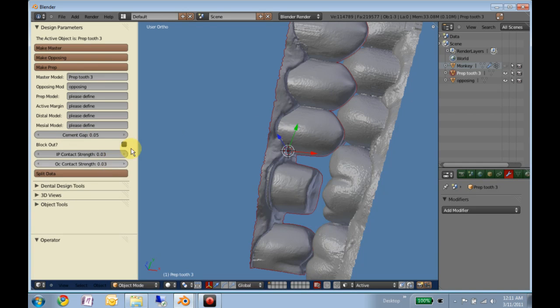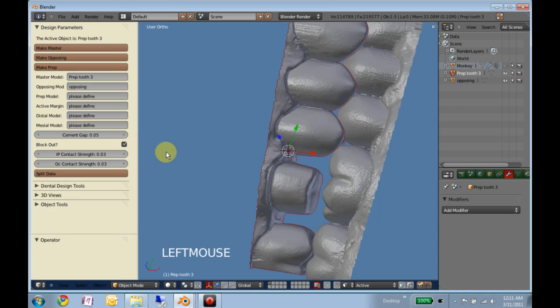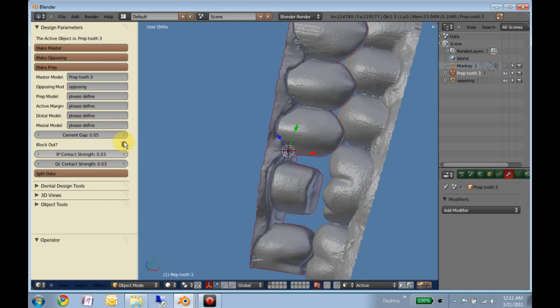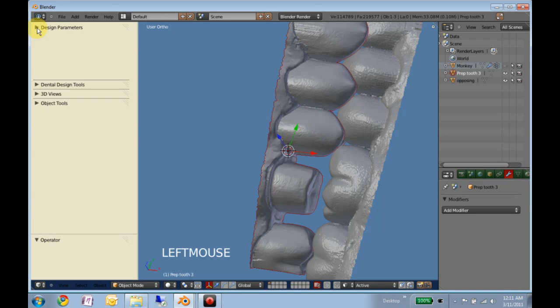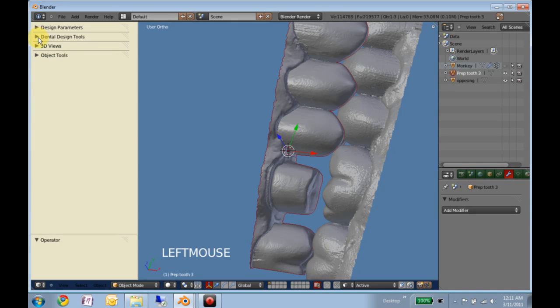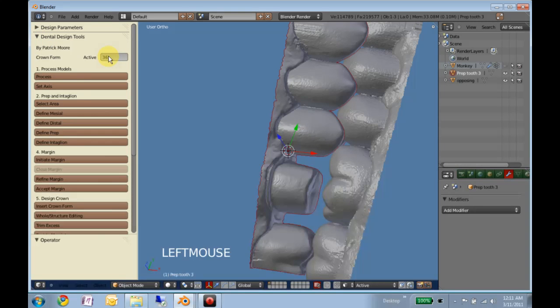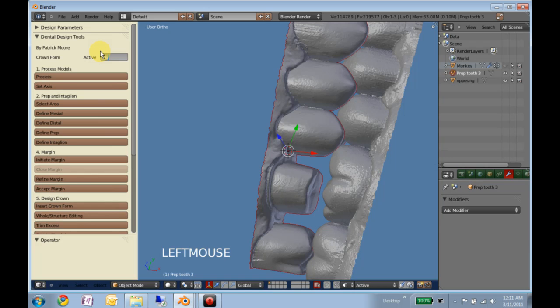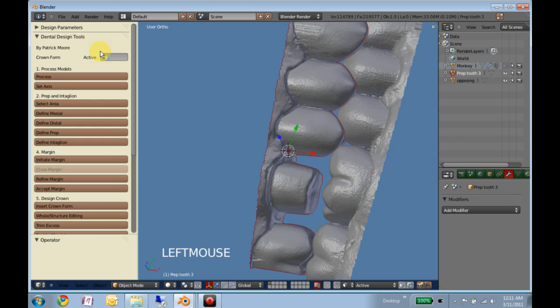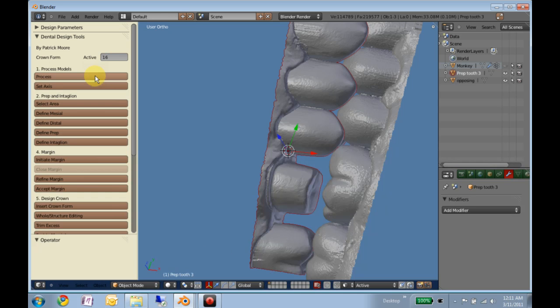These parameters are all fine, and block out is now automatic, it gets blocked out no matter what, whether you check this or not, so this is kind of a vestigial piece, and that will get cleaned out in the next update. Okay, we're working on tooth number 16, and that's the international quadrant and then distance from center system, so tooth number 3 for us Americans. And that's all we have to do now, and we'll click process.